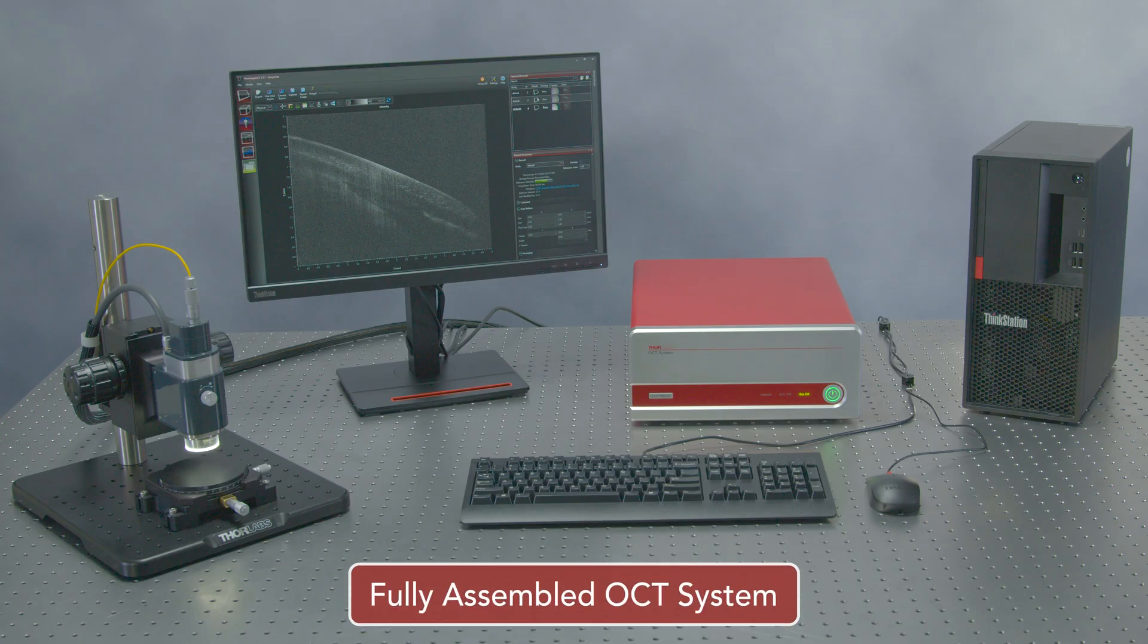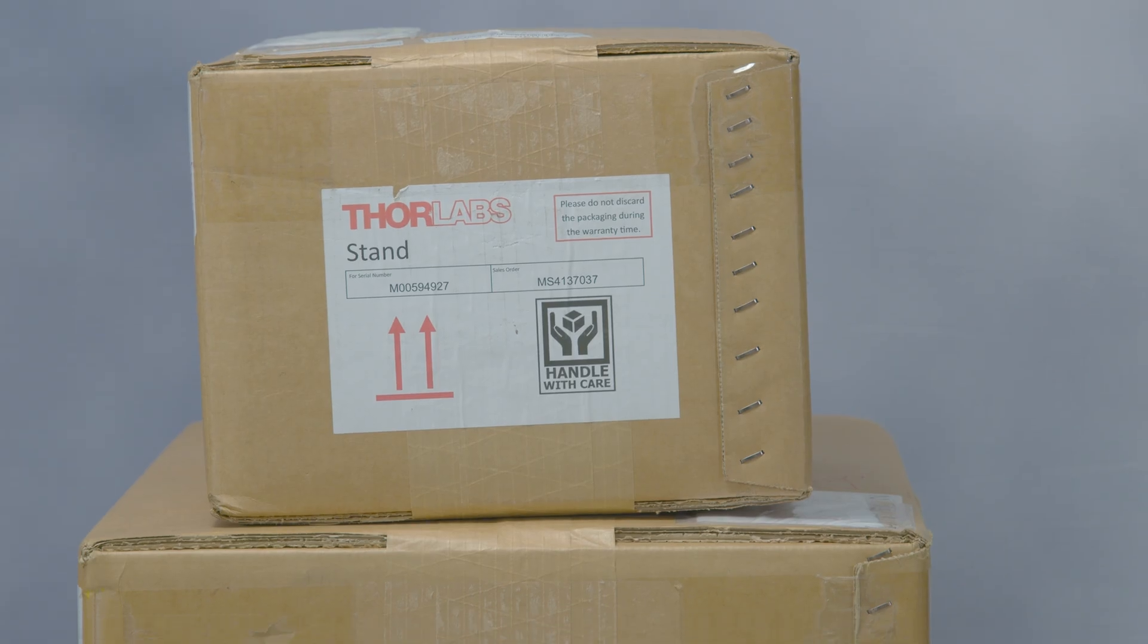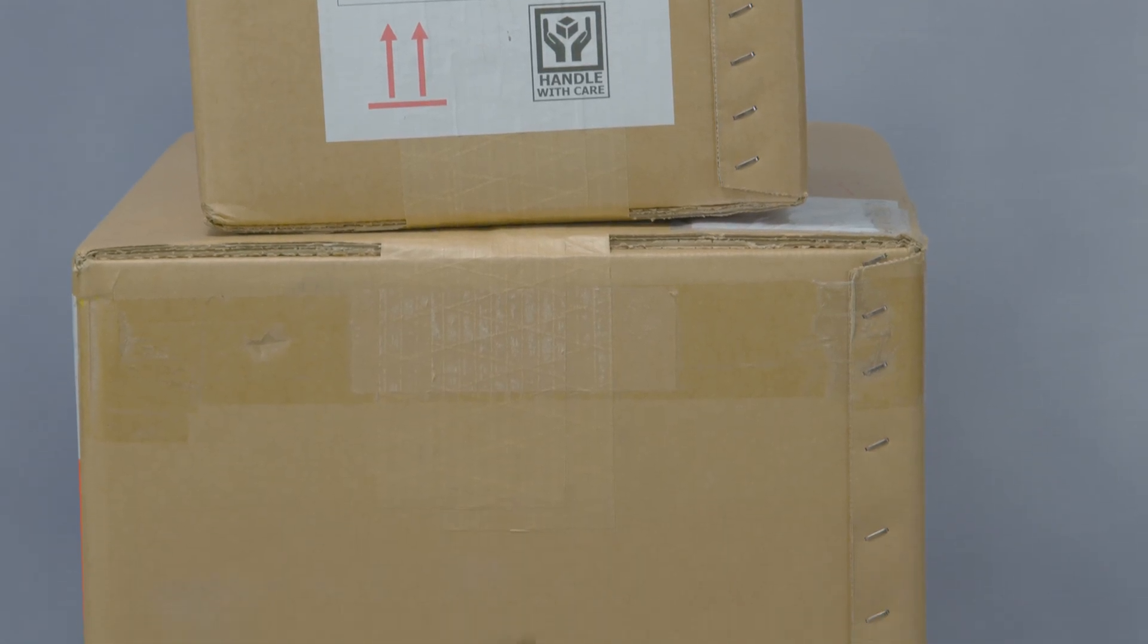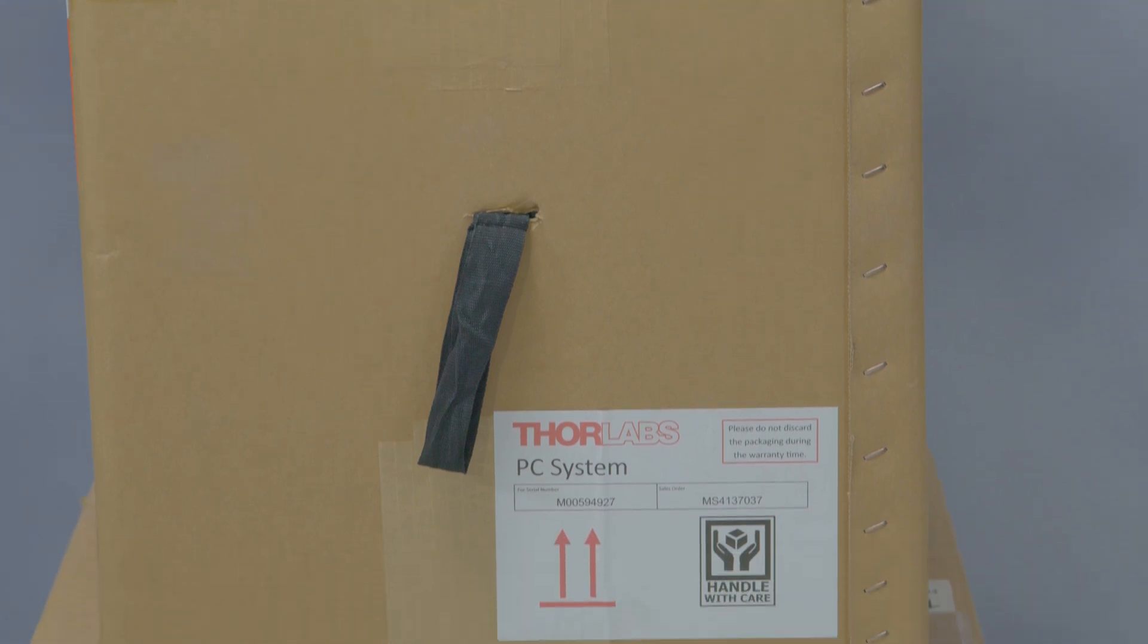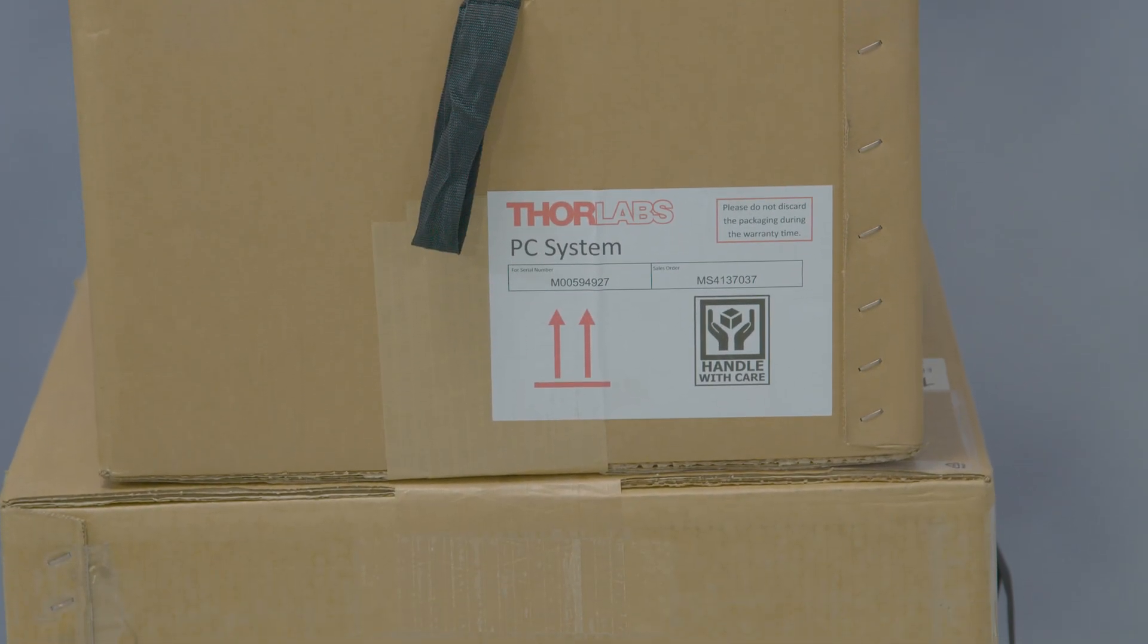Welcome to your new Optical Coherence Tomography or OCT system. Please follow along for complete setup instructions. Your OCT system will arrive in three separate boxes.